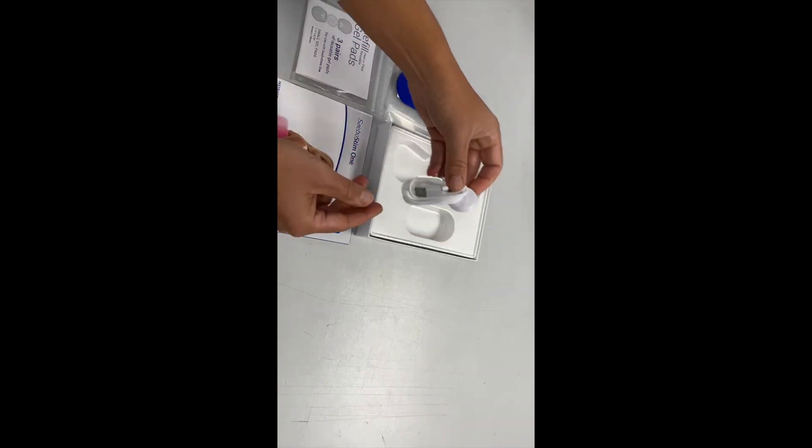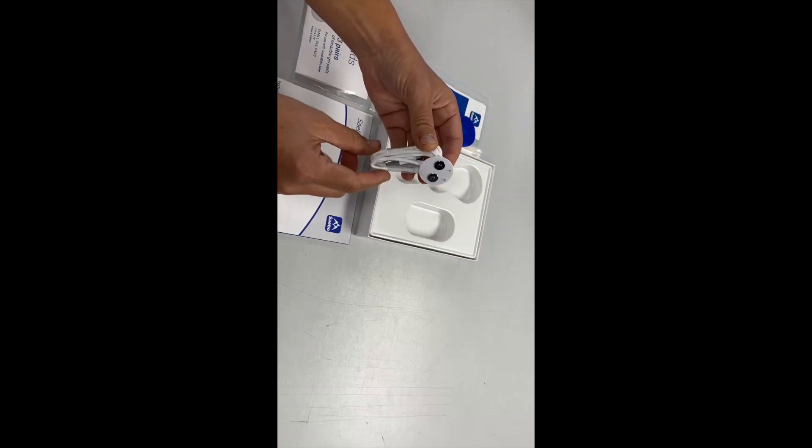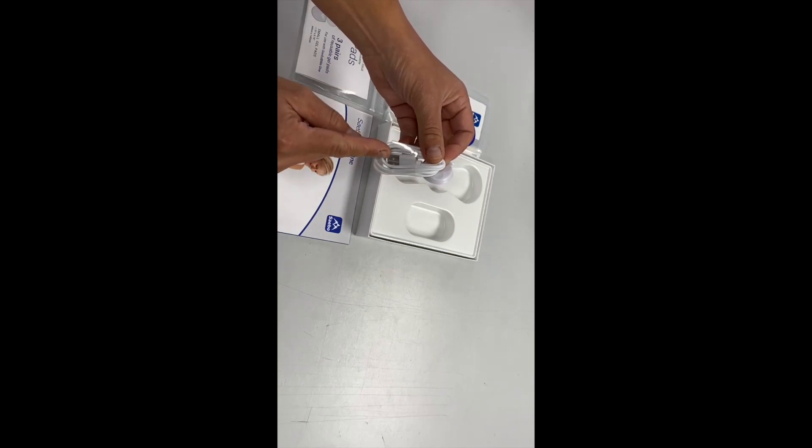We've got the charging cable. This is a magnetic disk for the white power disk and a USB port to plug it in.